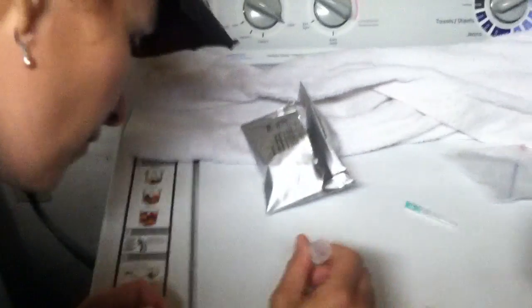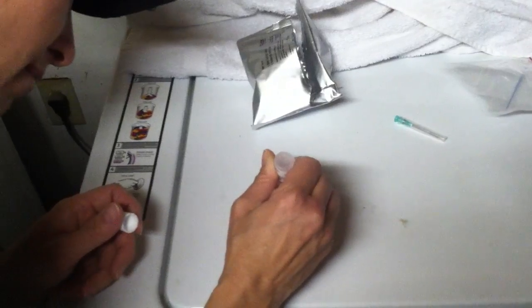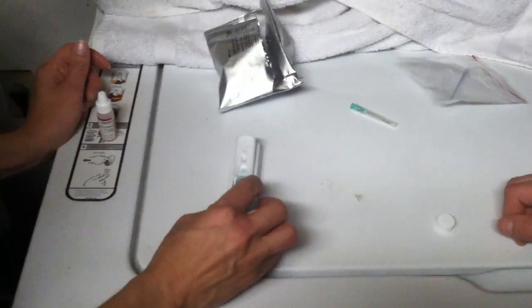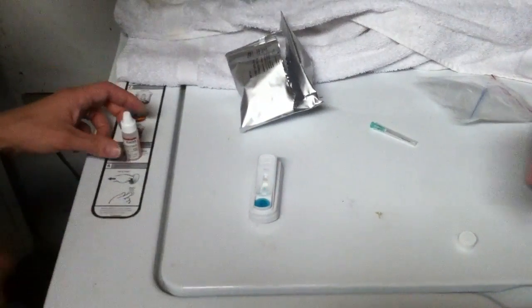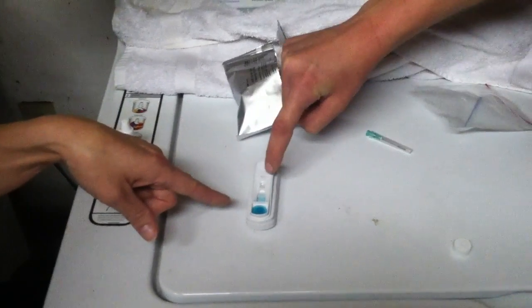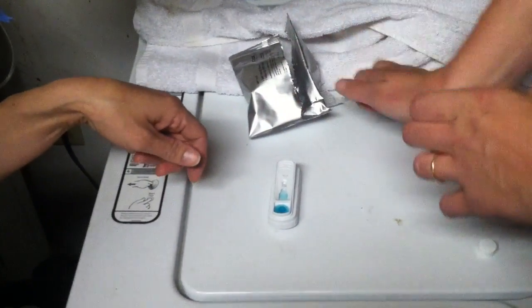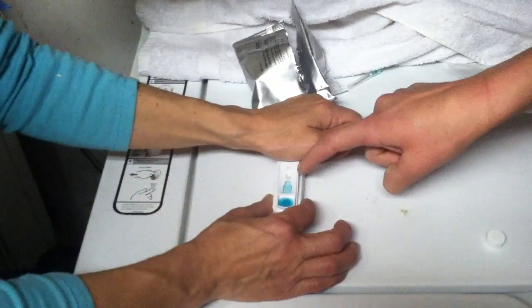You popped up — you almost got blinded by the light! Perfect. Now you're done with that, you can throw that away. Now this whole thing gets poured into this little thing right there. Now you're done with that. You're gonna see the blue creeping — you see it? When the blue creeps and reaches this separate dot right there, you're gonna put a ton of pressure right there and snap it. I would put two fingers here, but not yet — wait until it turns all the way blue.